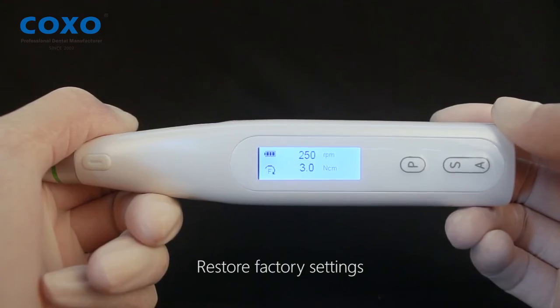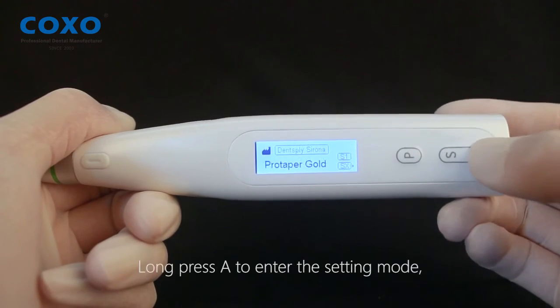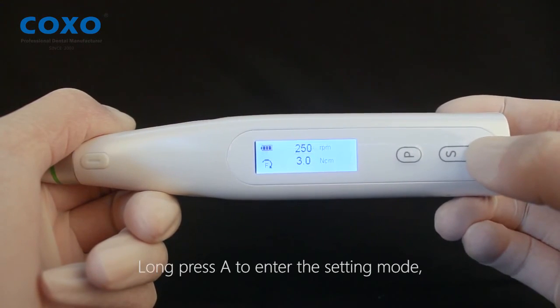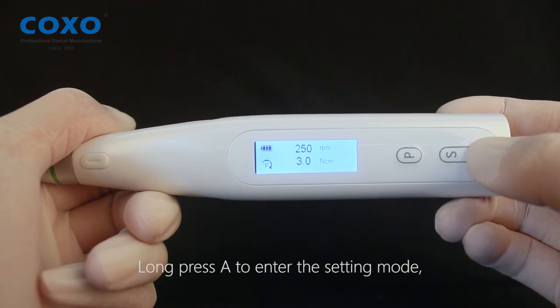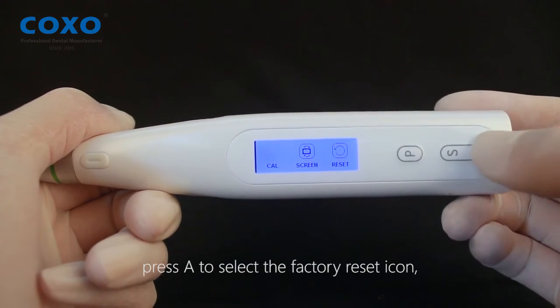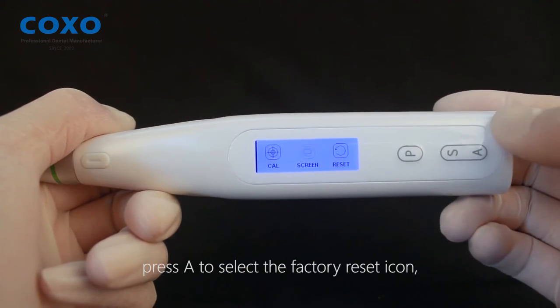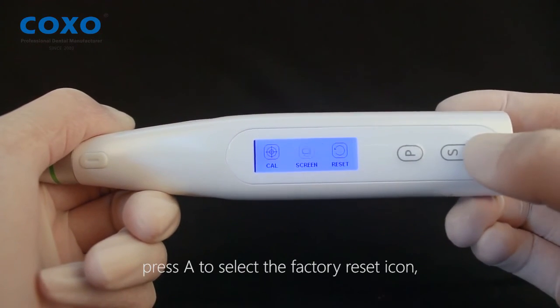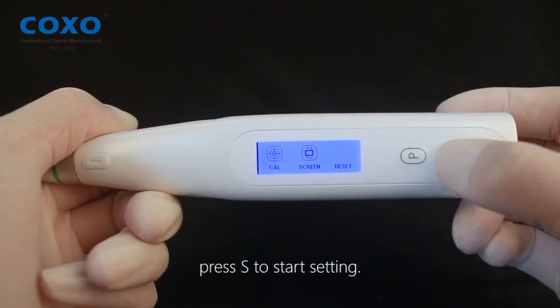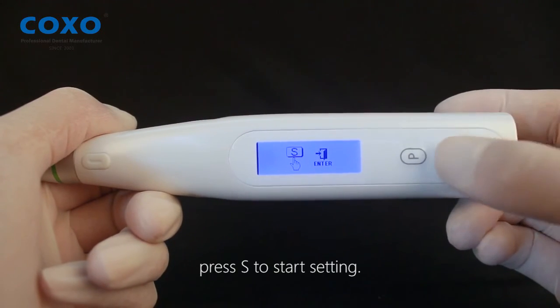Restore factory settings. Press A to enter the setting mode, then press A to select the factory reset icon. Press S to start the reset.